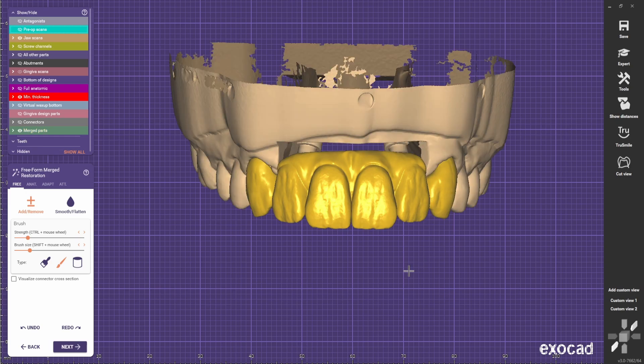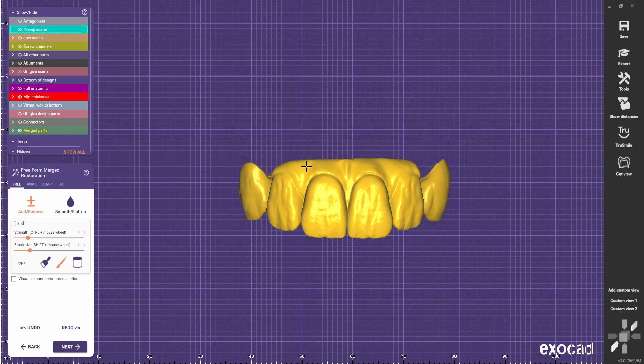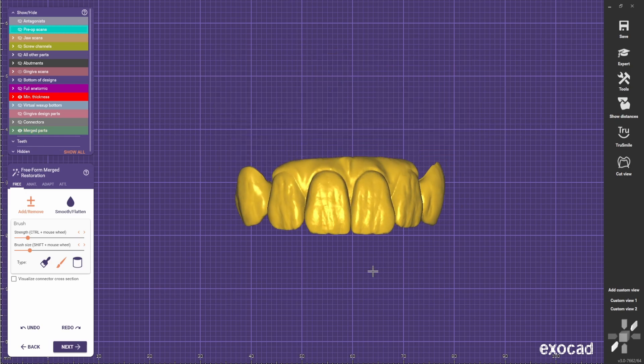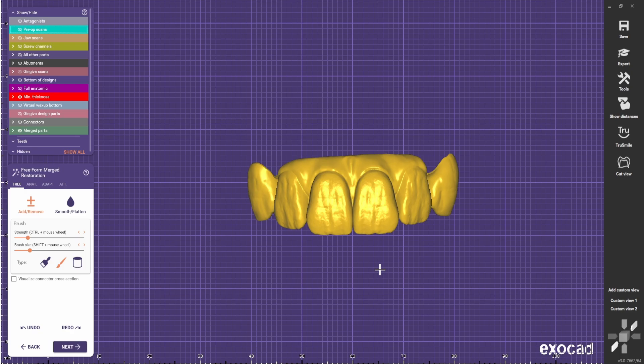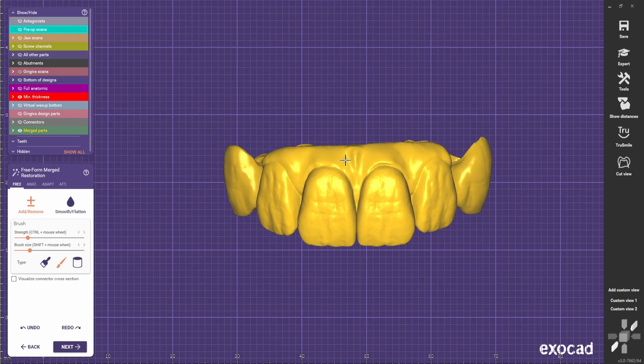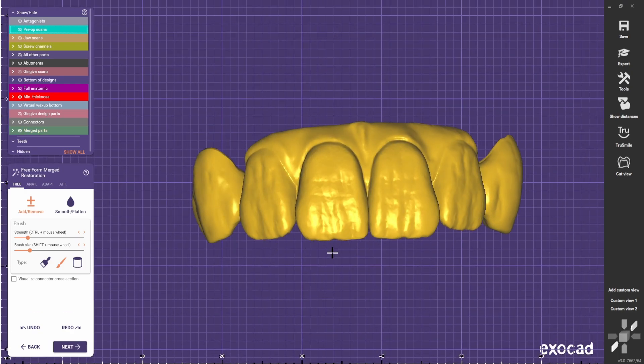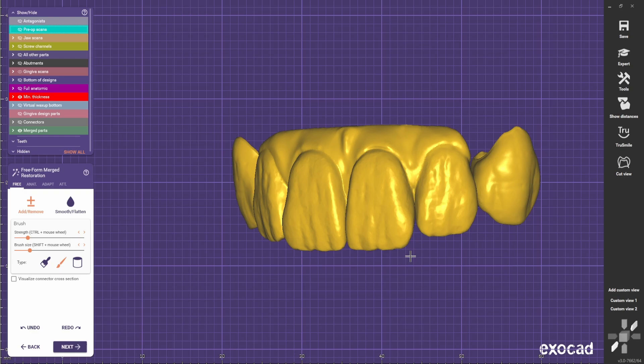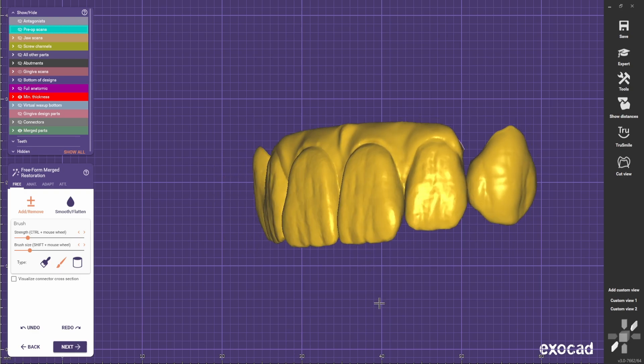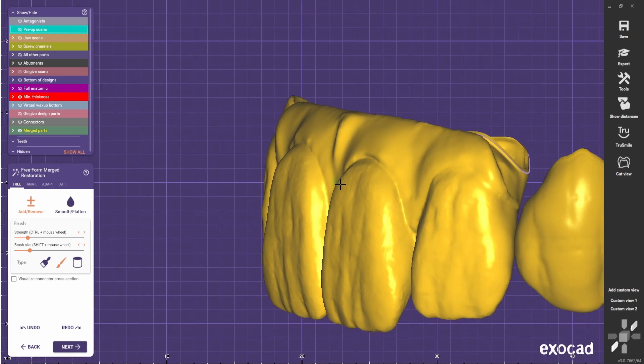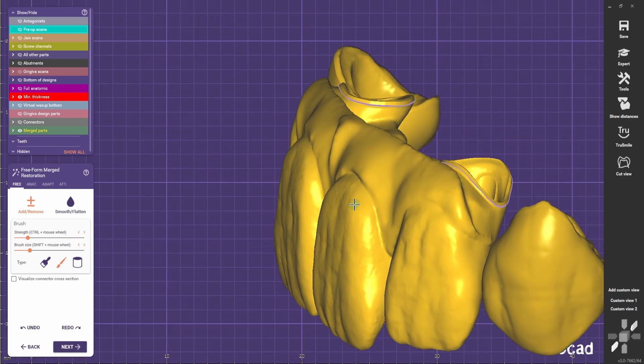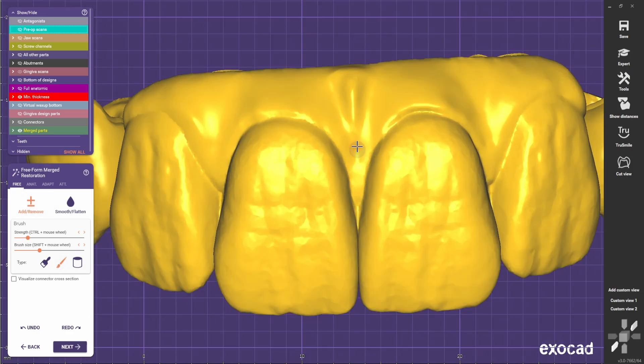So they look a bit more similar now. And now we're going to focus on making the gingiva as real as we can. First we need to bulk up the papilla here and here because usually the gingiva, especially in this area, is as bulky as the teeth. So I'll show you how.